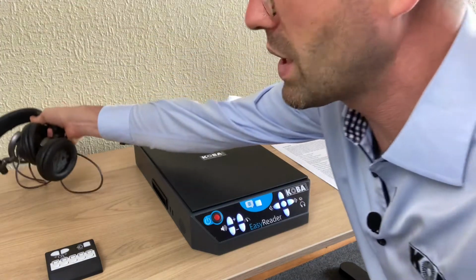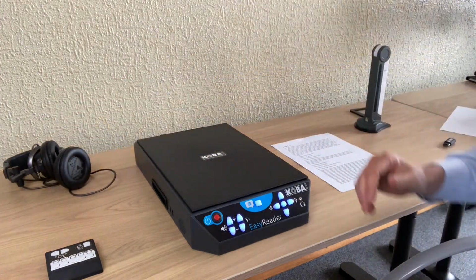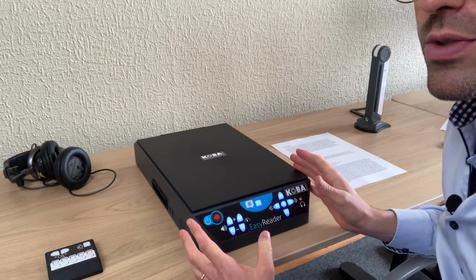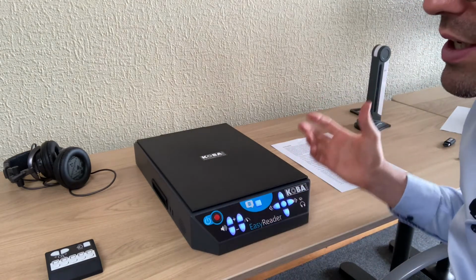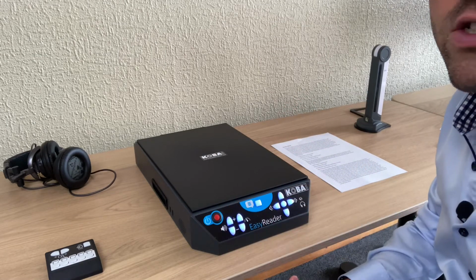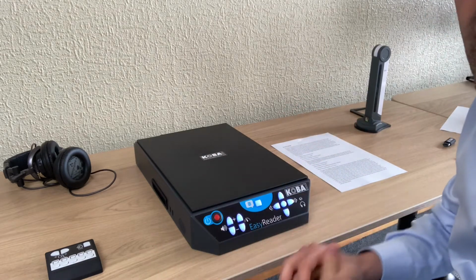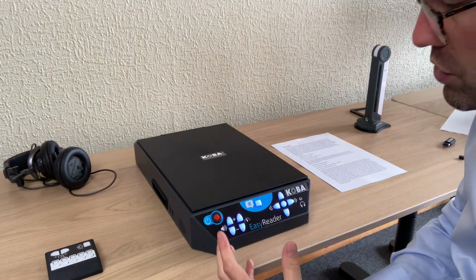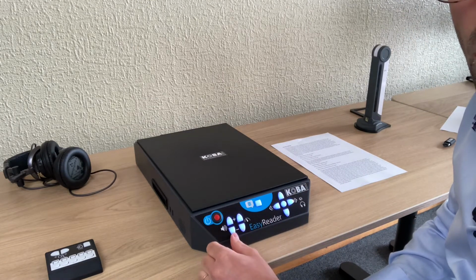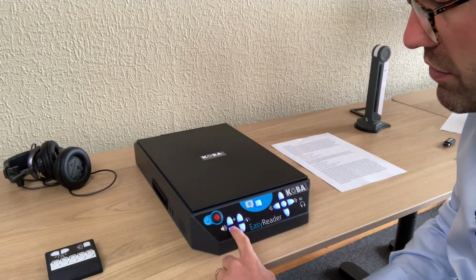The machine is equipped with in total 34 languages. Now we only have English, of course, but you could add French, German, Portuguese, things like that. So the machine has all the different languages. How can you change the language? That's just by pressing long on one of the volume buttons. So I press the volume button long.